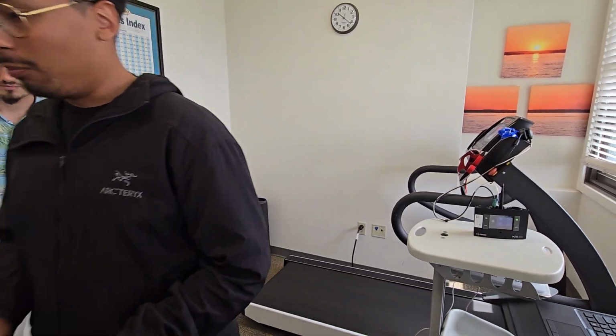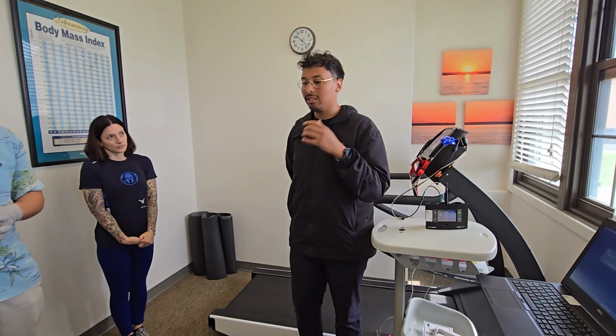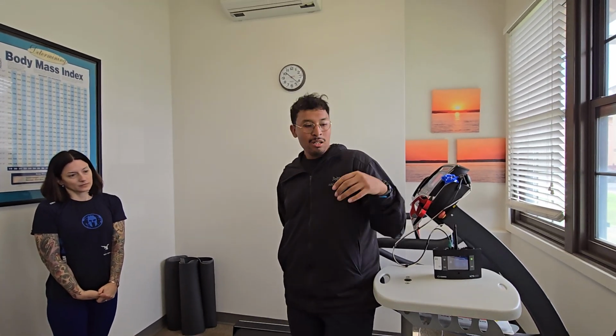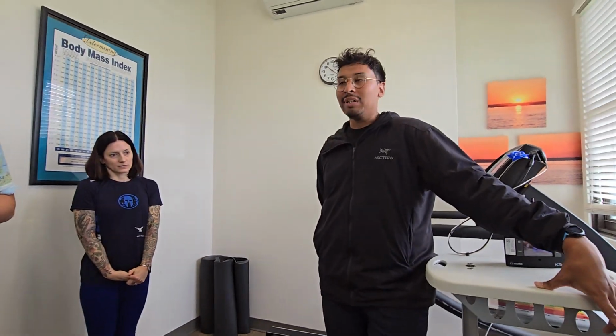So breath by breath is going to analyze every single one of our breaths in real time. For most of the normal population, that's totally fine. And then you have the mixing chamber.